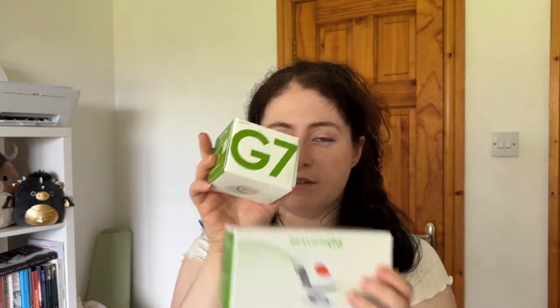An issue with both the G6 and G7 apps on the phone: you always need to keep the Dexcom app open. I actually have both apps on my phone since I go between the two. It's very easy to close all your apps and not realise you've closed it. Luckily my phone gives an alert saying the app is closed and you'll get no more readings, but you cannot get readings on your phone if the Dexcom app is closed. Even on my widget screen I'll lose readings if the app is closed, so always keep whichever Dexcom app you're using open on your phone.